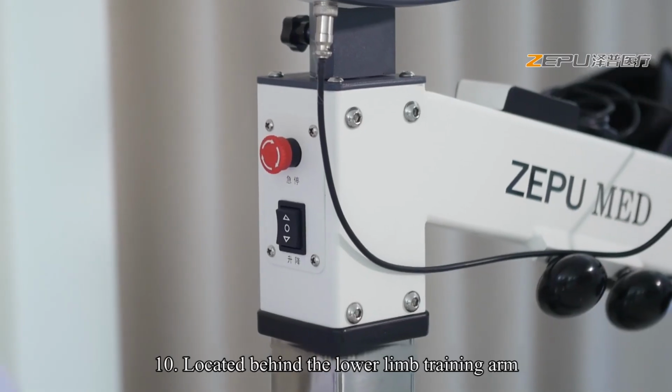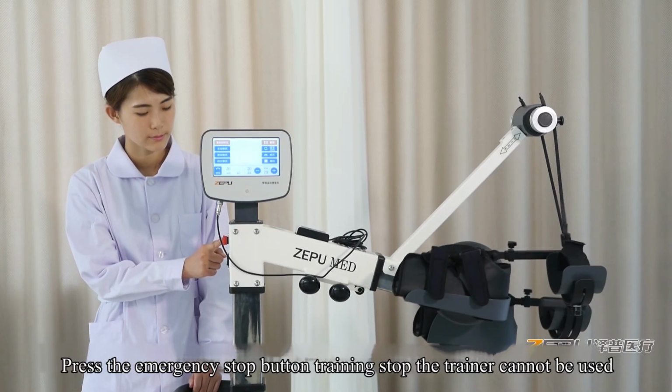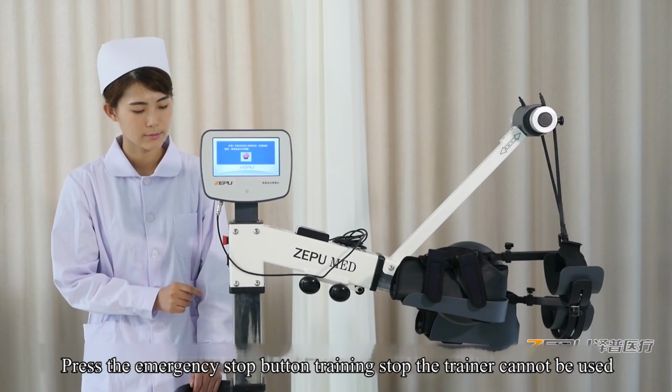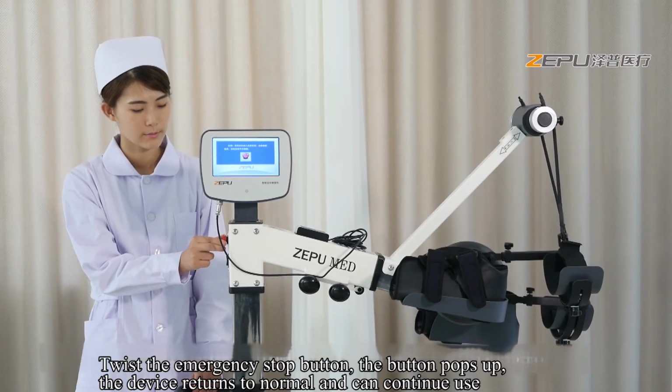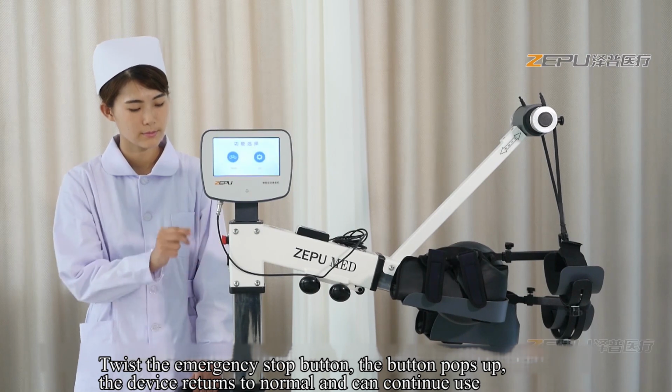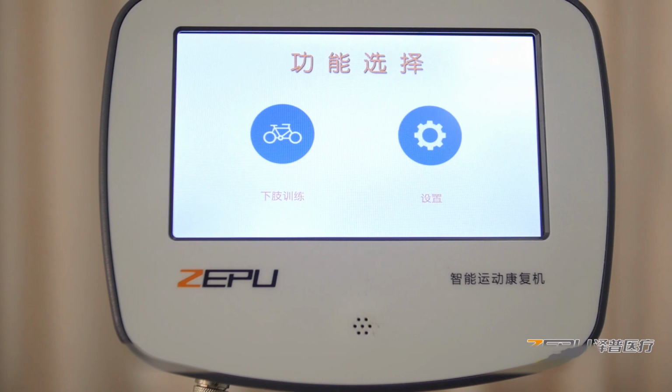Ten, emergency stop button. Located behind the lower limb training arm. When an emergency occurs, press the emergency stop button; training stops and the trainer cannot be used. Twist the emergency stop button, and the button pops up. The device returns to normal and can continue use.